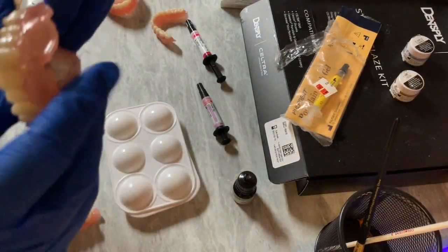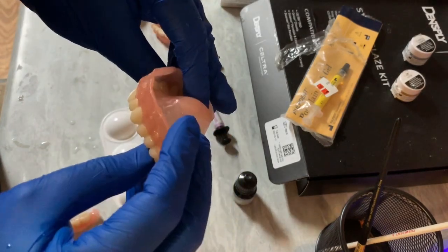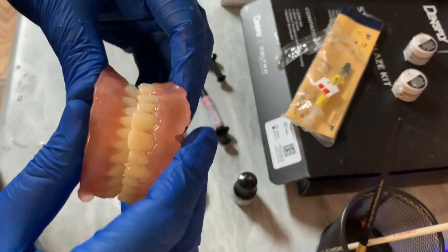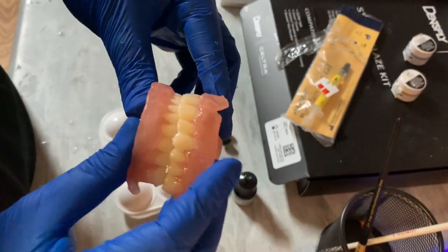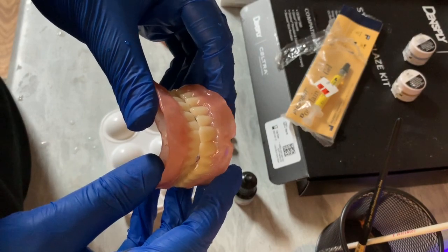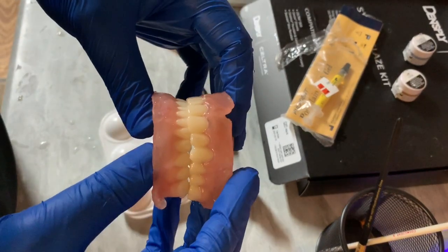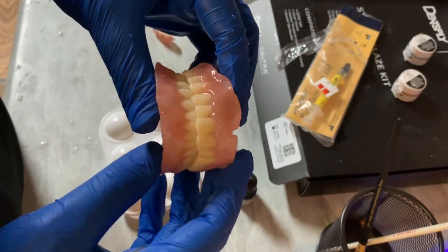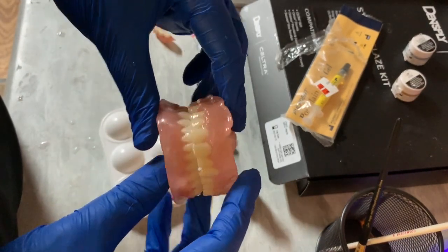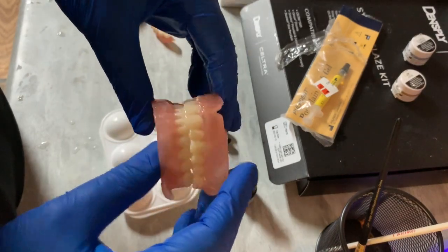Okay, here we are — final product. And there we go, looks pretty good if you ask me, especially for a temporary healing immediate denture. What's pretty neat about this is it's all delegatable, and I fully recommend you train your team how to do this. I think it looks pretty darn good. For a full set, $100 to $200 altogether, depending on if you do the design or outsource it to something like Lab Pronto or Labo 3D. Train your assistant how to process them and you get a very nice, functional printed denture without losing your shirt on PPO write-offs.